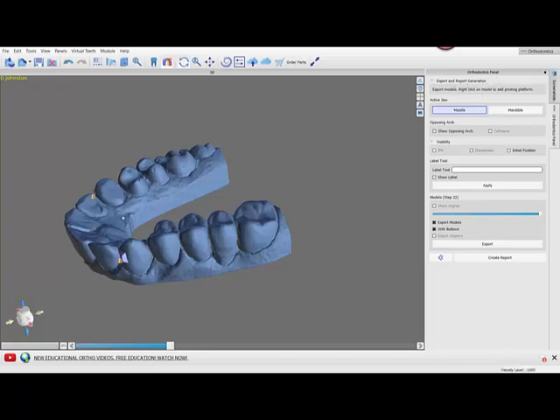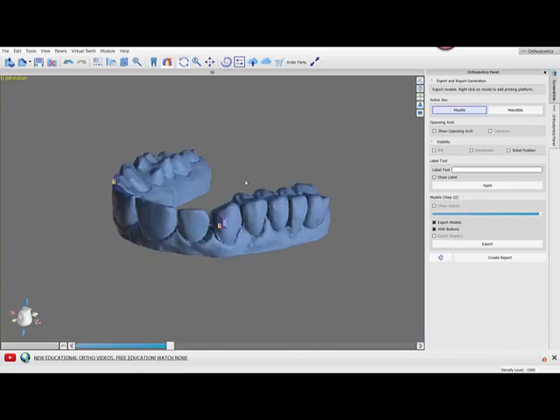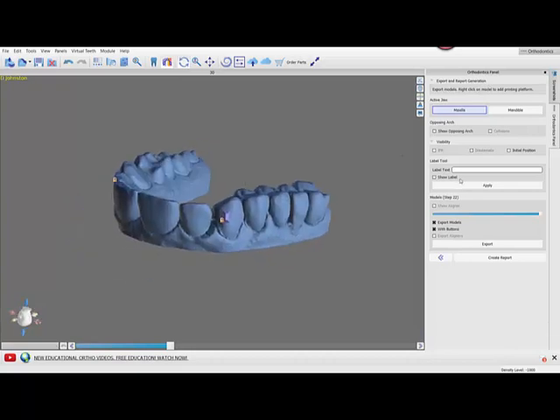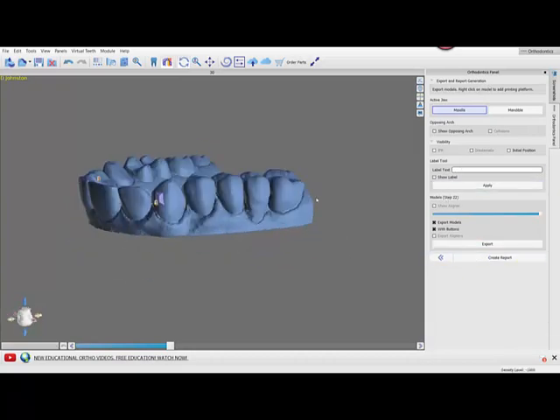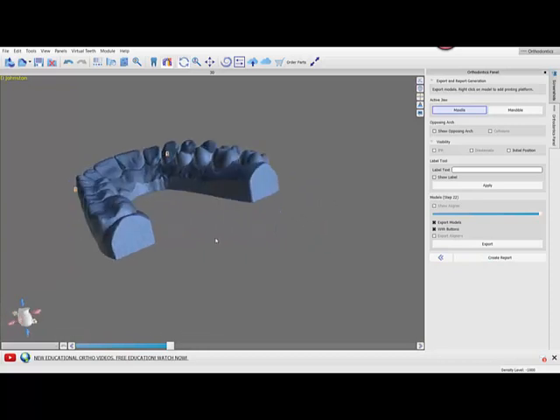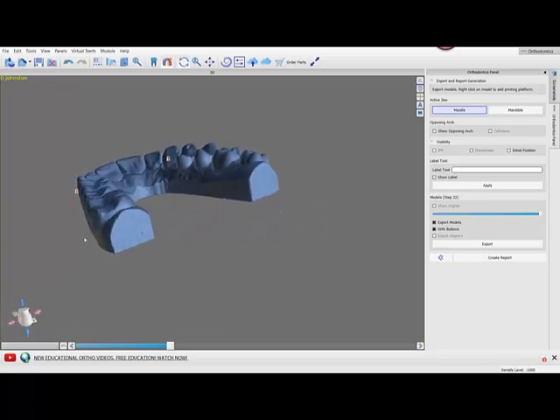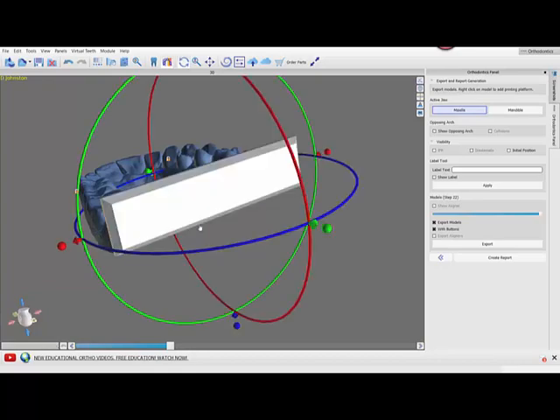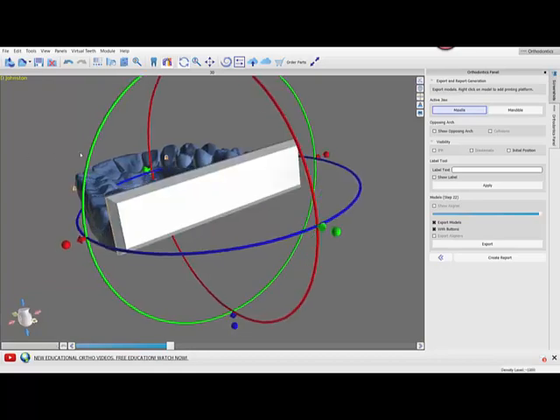I've already added buttons. This is where you would add a label and export your models. In this phase, if we right-click just like we were adding a button, but right-click on the heel and say add platform, it adds it for us automatically.